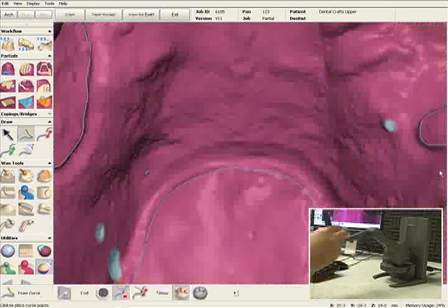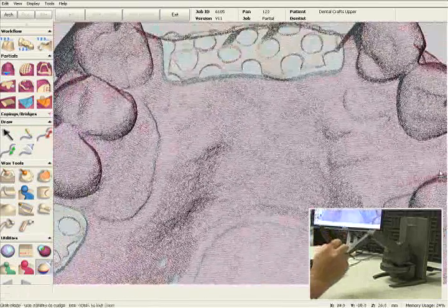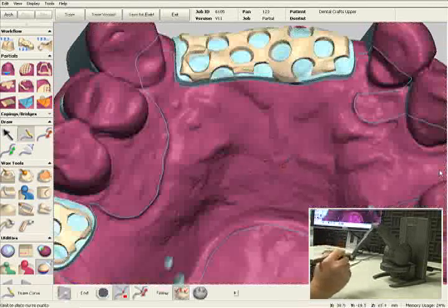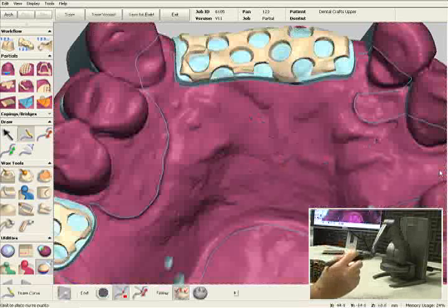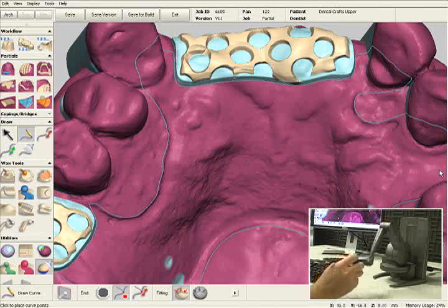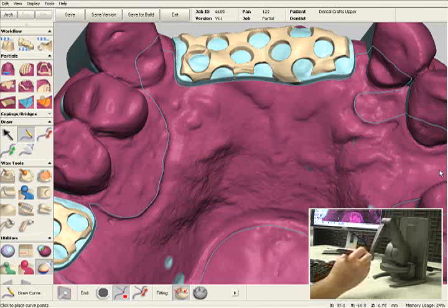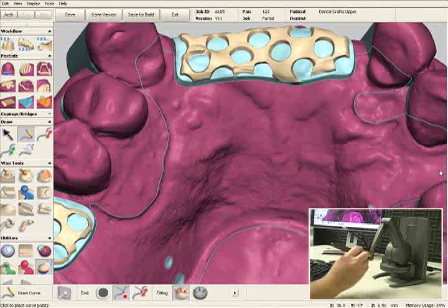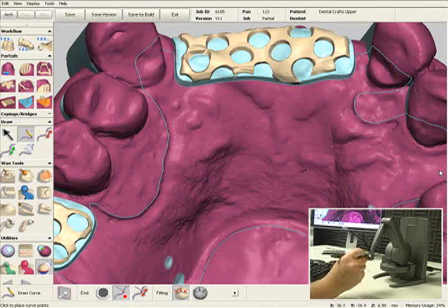Before adding the major connector, I'd like to block out this palate area a little bit, because we can see there are some rough spots around the rugae area and the tissue itself is a little bit rough. So I'd like to add just a little bit more block out wax — about 70 to 100 microns thick — to make sure I have a perfectly fitting partial once the resin pattern is printed and the partial is cast. I'm going to select what we call a filler tool.